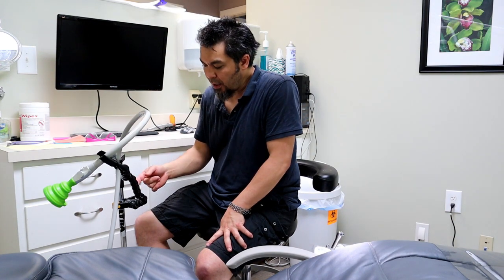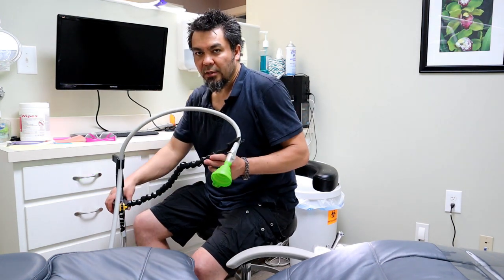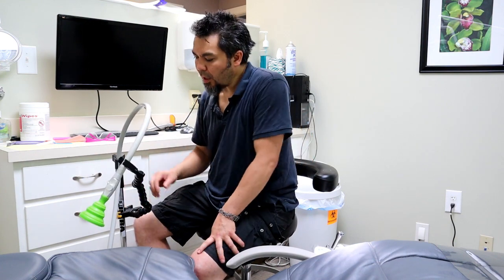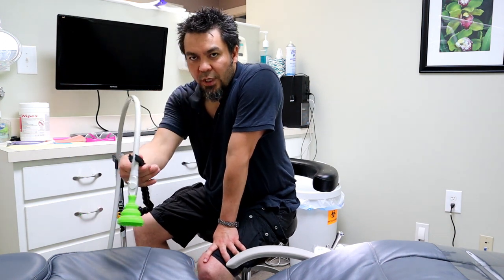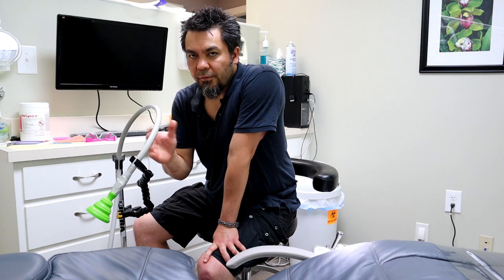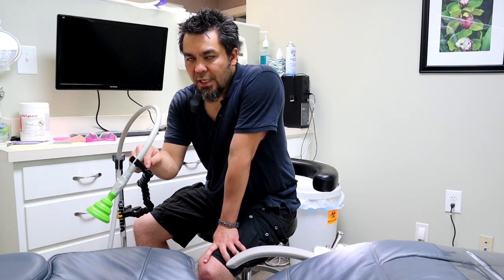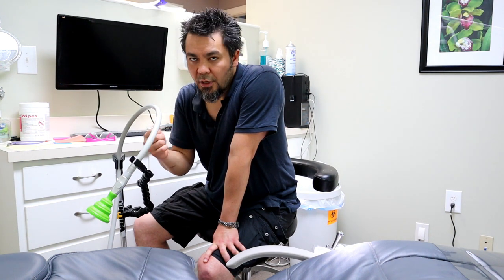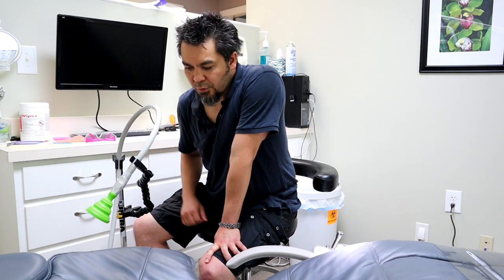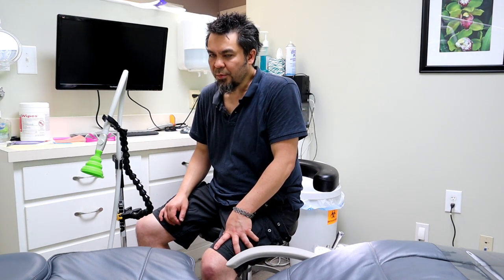Another tip is where you clamp on the pole of the microphone stand, since it's often nice to be able to tilt the HVE line out of the way when you don't need it. Regarding the joint not being particularly stiff — we do sell a kit that lets you pop the end off the PLAMP and tighten that joint. First experiment with the angle to try to make it work without tightening. But if you need to tighten it, we sell a little kit with a Torx wrench, or you can use your own Torx wrench to adjust the tension of the screw. That pretty much covers the use of the PLAMP for this dental purpose.